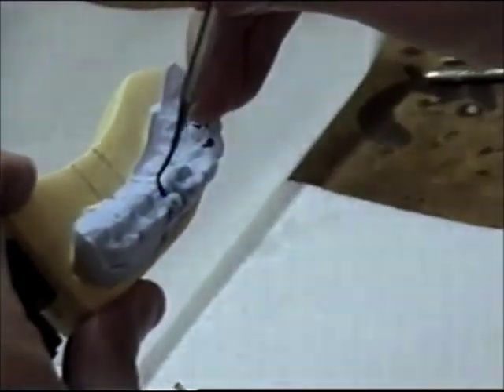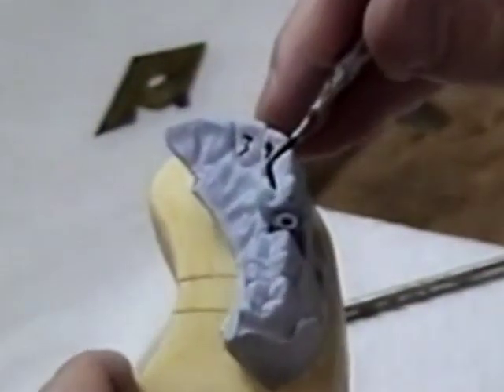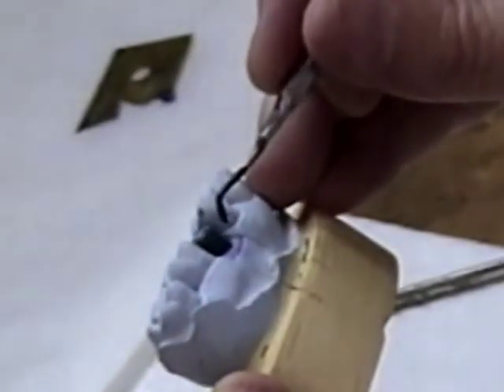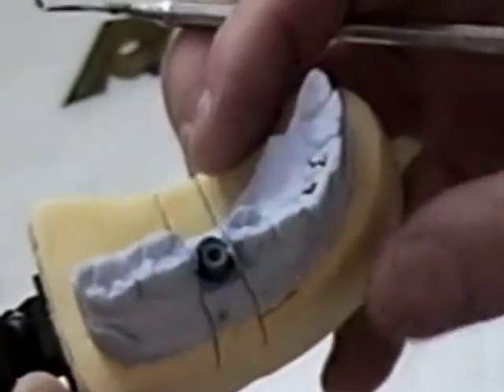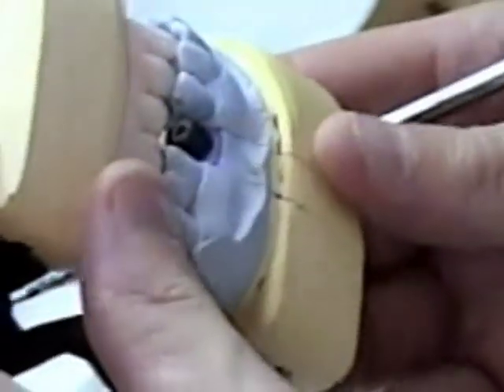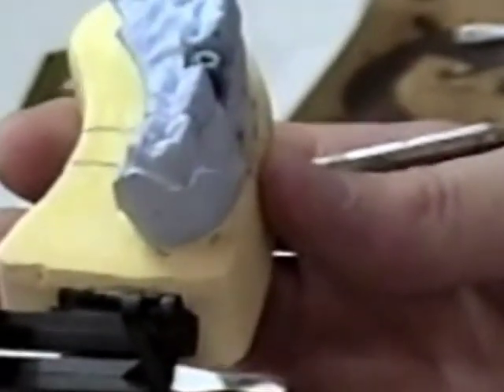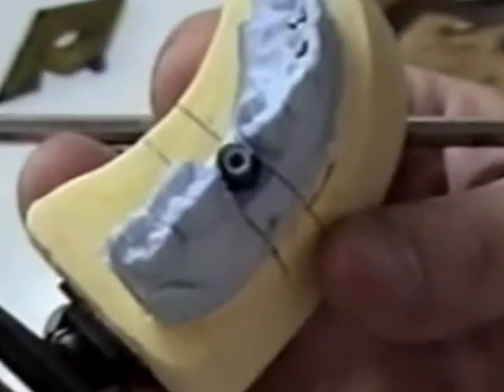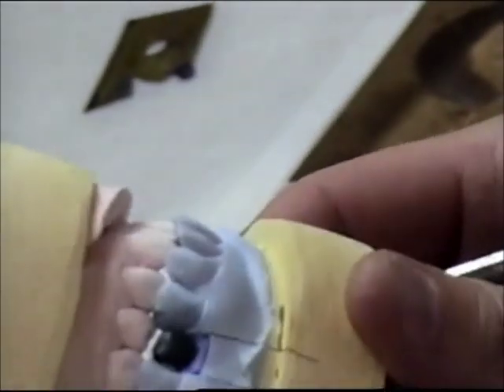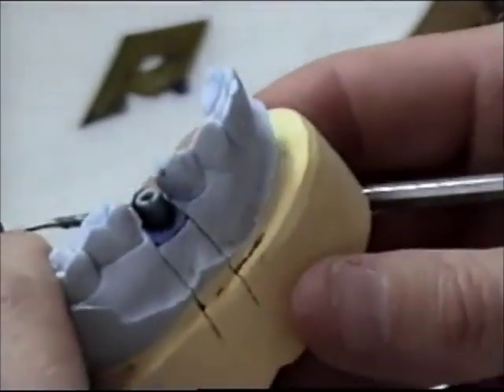I am going to build up this lingual here. Now I have flowed some wax all the way over the coping, or the abutment cylinder — the plastic cylinder — and built up the lingual slightly so that we will have good support there for the crown. A lot of this we can do in the framework of the porcelain crown we are going to be making on top of the abutment. So it is really pretty simple — it is a rough wax up.